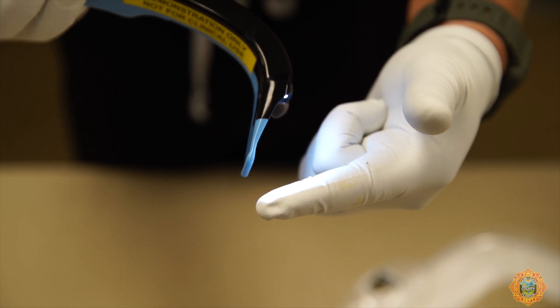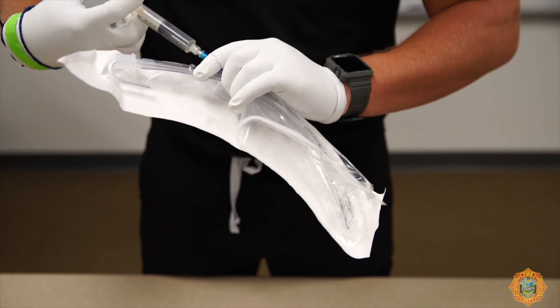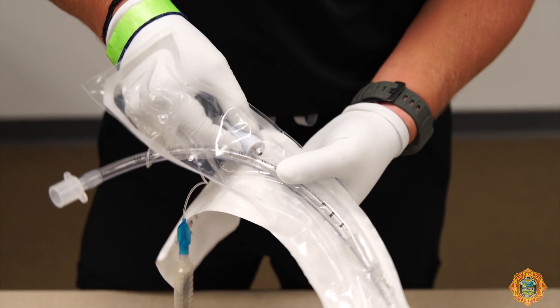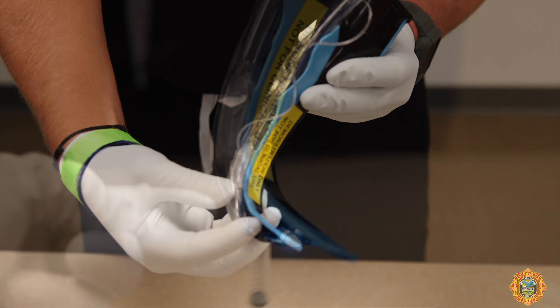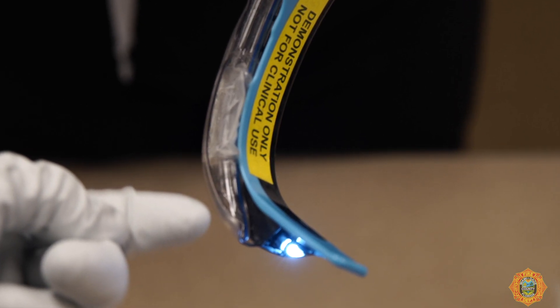When the light remains steady, the anti-fog system is fully activated. Inflate and check the distal cuff of the ET tube for leaks and punctures. Deflate and remove the stylet. Lubricate the ET tube and place it into the lateral channel of the AirTrack SP without contact to the lens. Align the tip of the ET tube with the end of the lateral channel of the AirTrack SP.